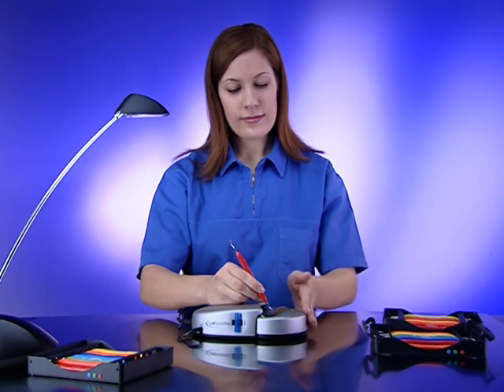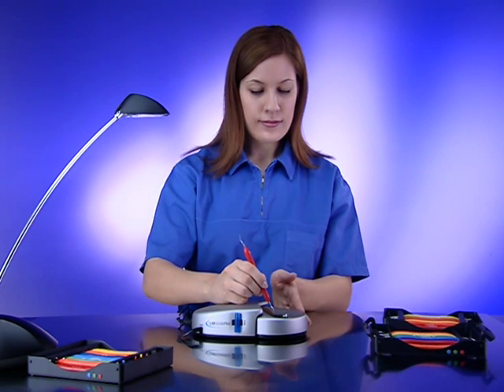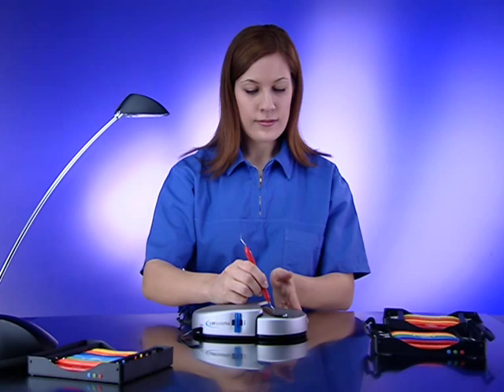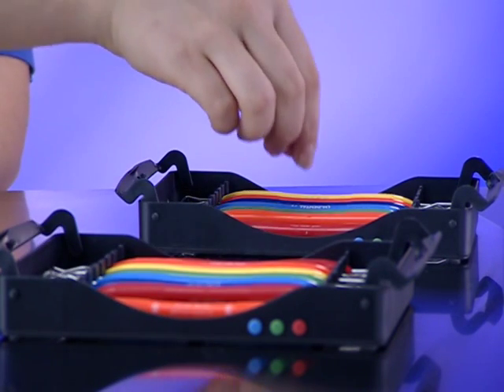Sharpening is precision work, so give yourself enough time and ample space for it. Don't forget to give special attention to the right ergonomics and especially lighting. Only sharpen clean, preferably sterilized instruments.